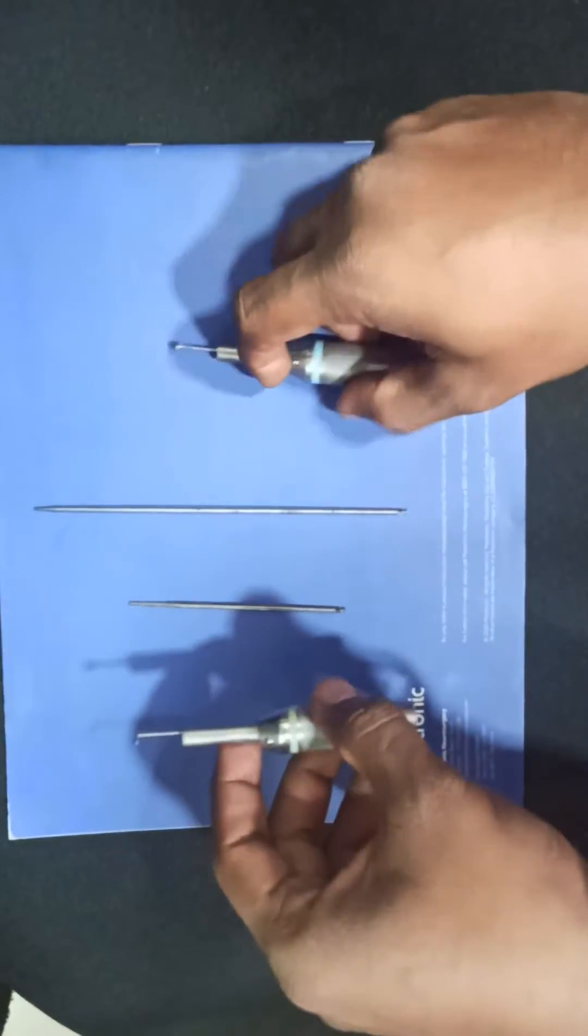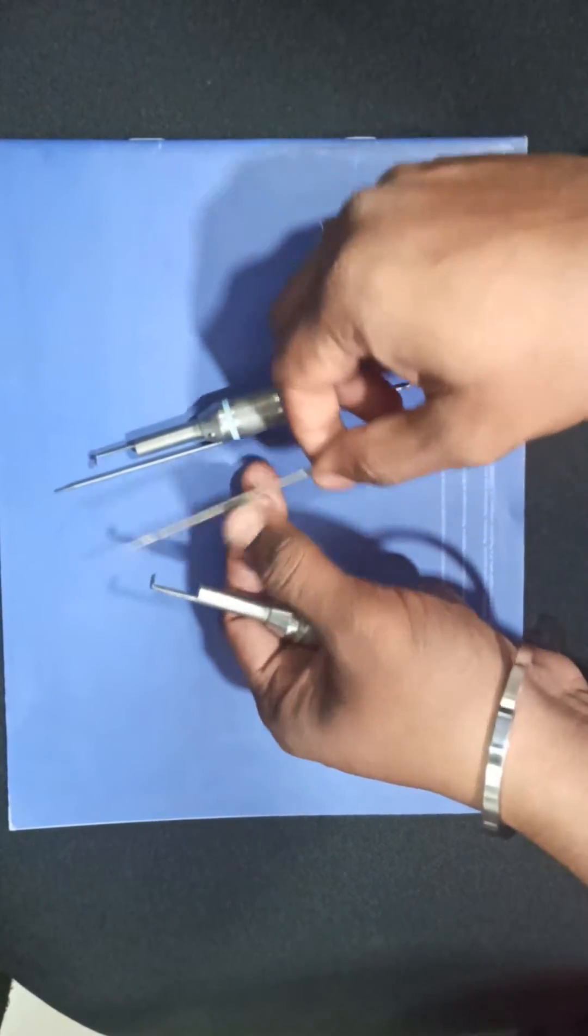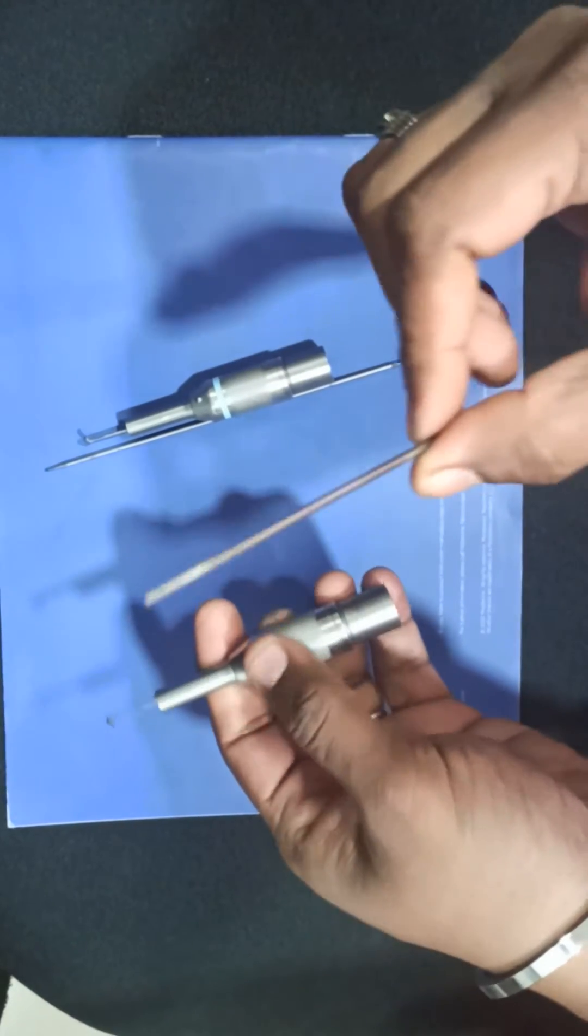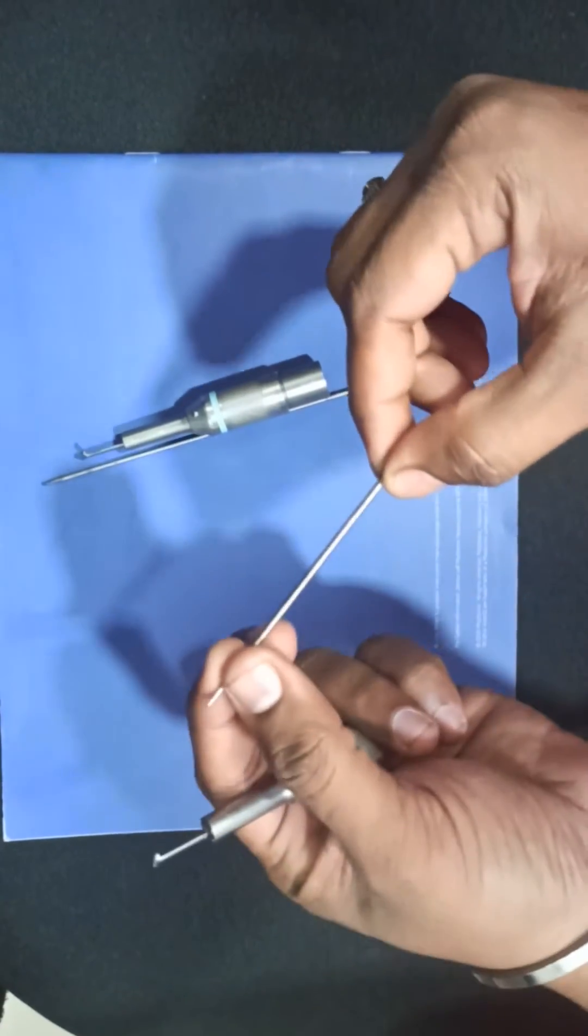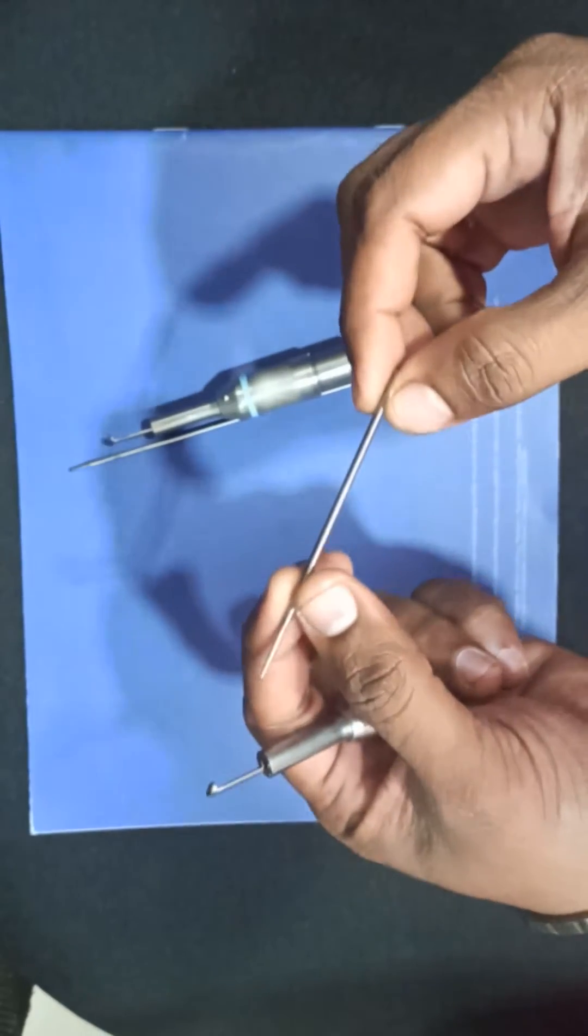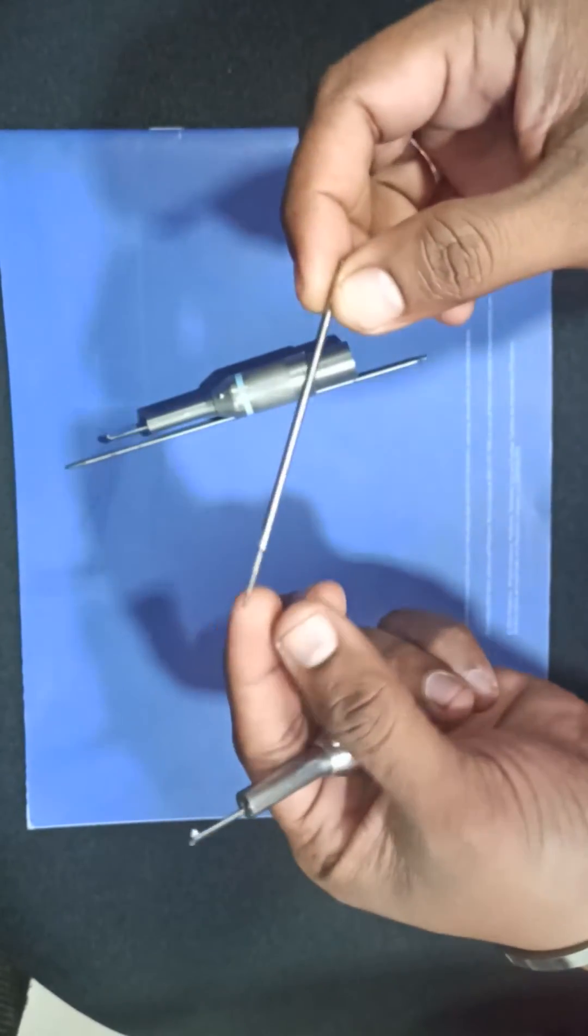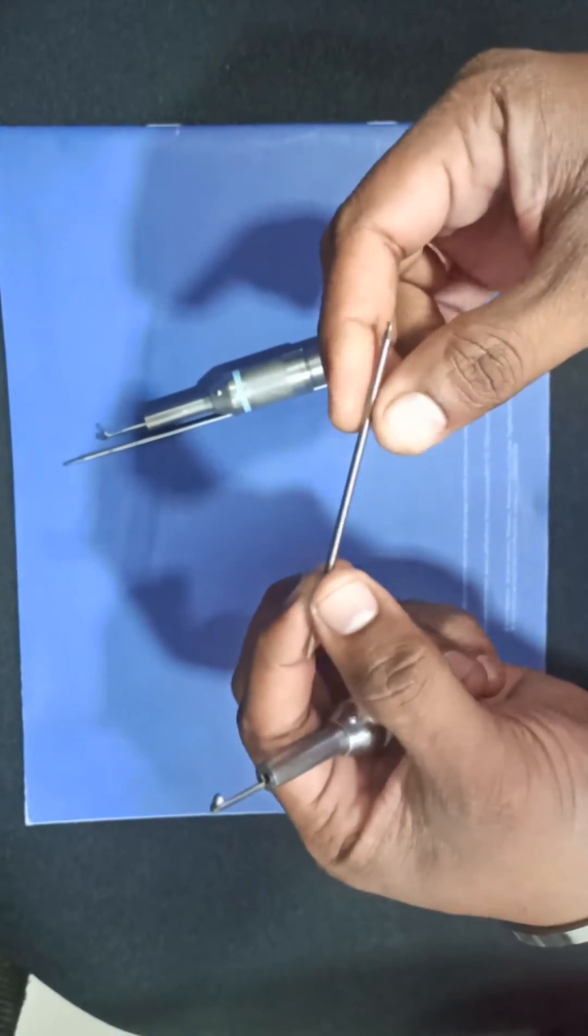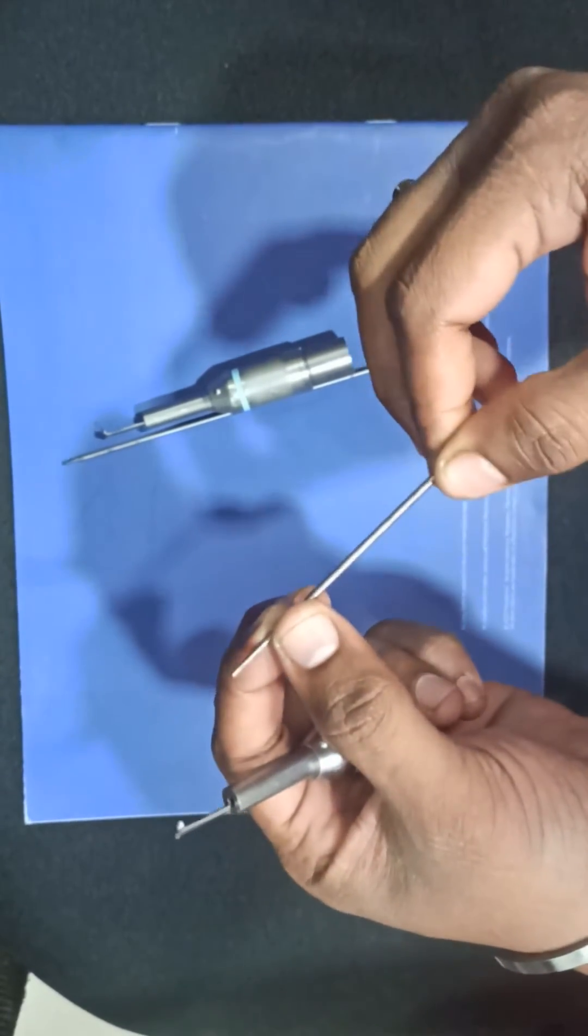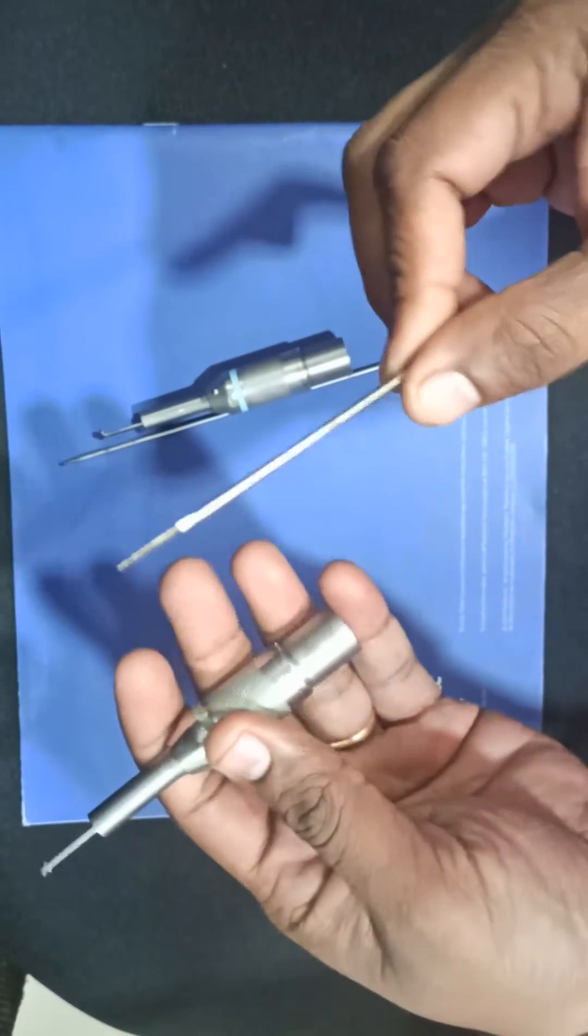Here is the F2 cutter. When you check this, you need a good cutter. Sometimes this cutter may be rusted or previously used. Don't use that reused or rusted cutter, otherwise your judgment will be wrong.